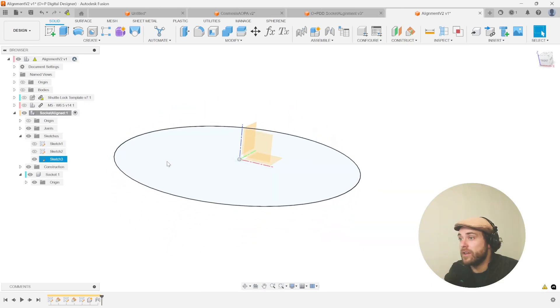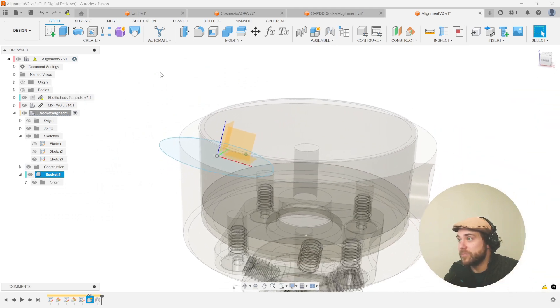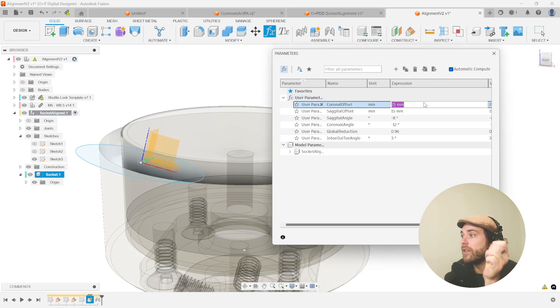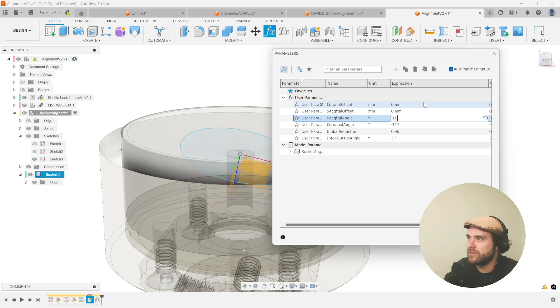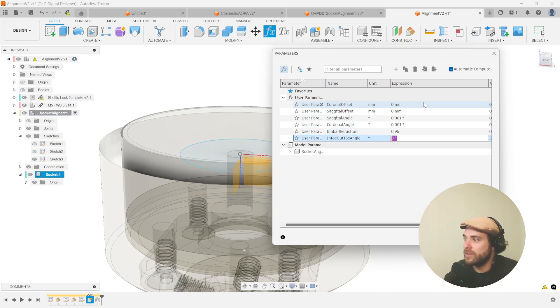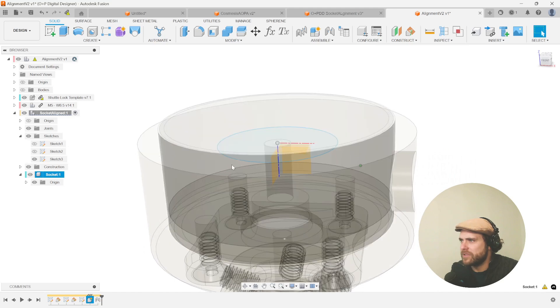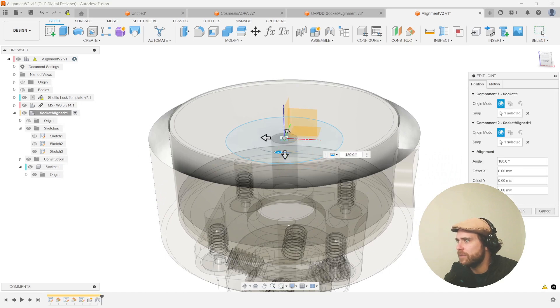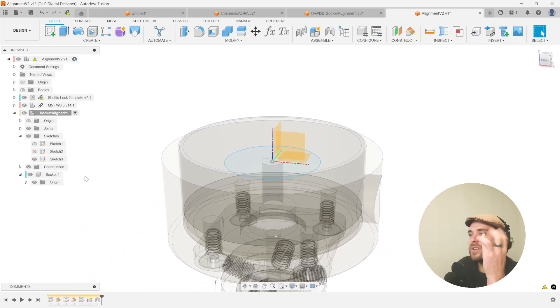We now have a container or component that will carry its alignment through a parametric timeline. We put it off to the side so we could easily identify what we were selecting — putting it on top of another origin makes this a nightmare. Let's reset: zero and zero for offsets, and 0.001 for the rotation values. Hit OK — notice it's flipped upside down, which is probably going to be an issue. In my joints, if I flip it — there we go, bringing Z back to the upright position. Sometimes it flips around, so just be careful of that.